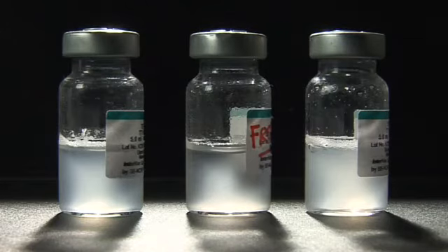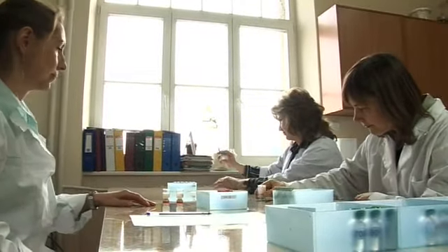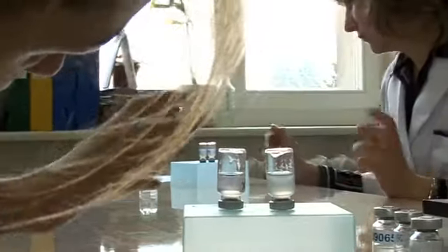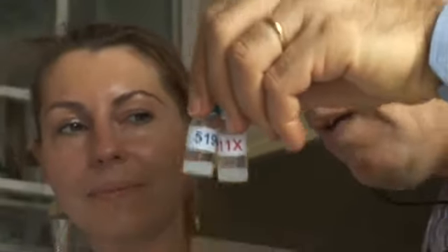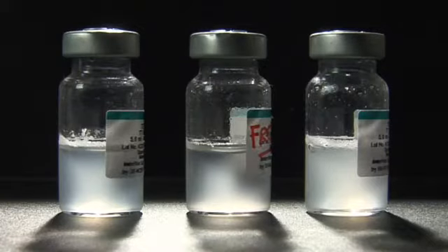Place the vials on a flat surface side by side and start continuous observation of the vials until the test is finished. An adequate light source should be used to compare the sedimentation rates between the vials. Most of the time, somewhere near a window is ideal. If the vials have large labels that conceal their contents, turn them upside down and observe sedimentation in the neck. We will fast forward the video for you to see the difference in a shorter period of time.